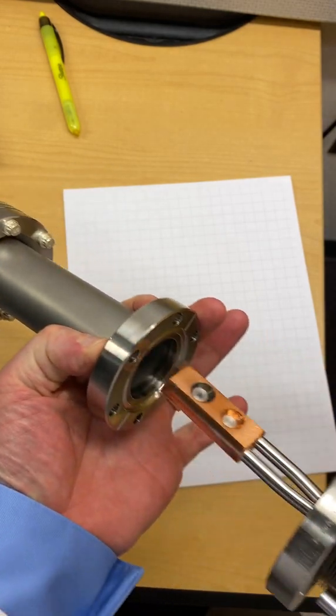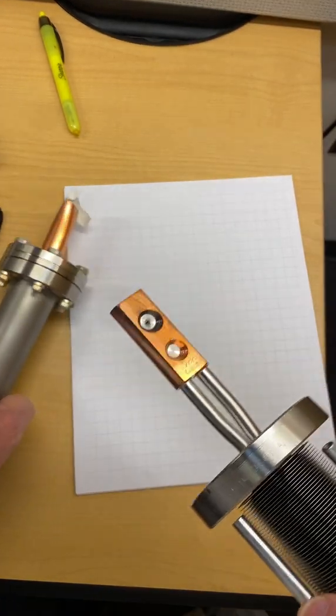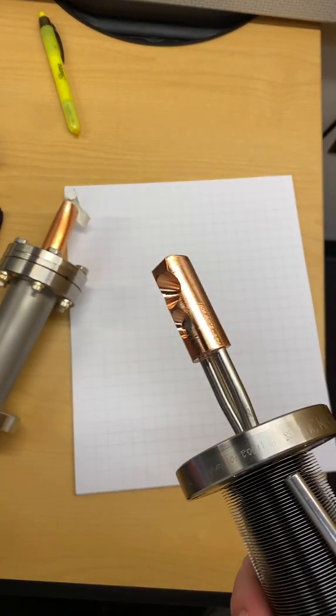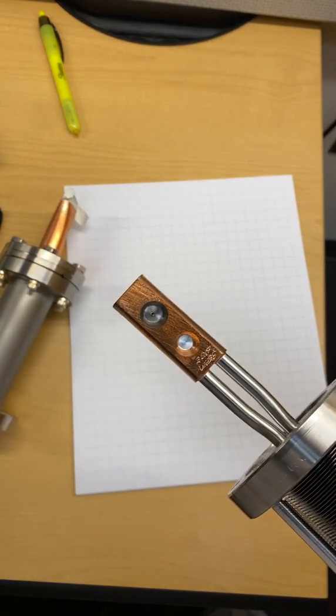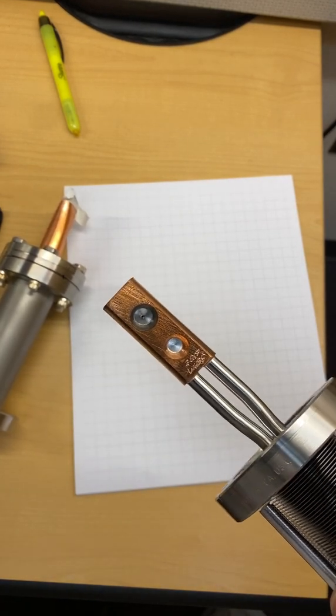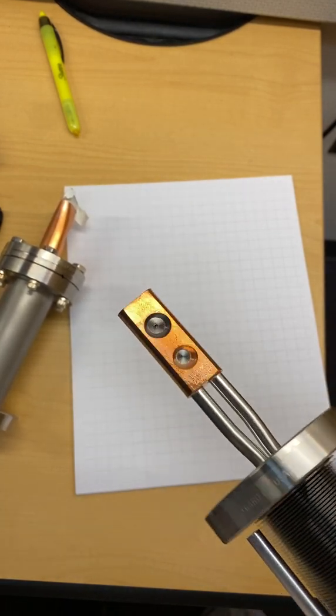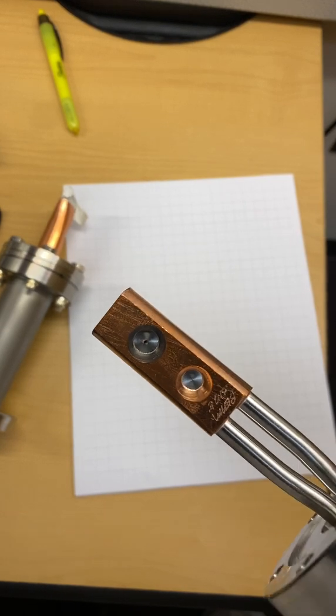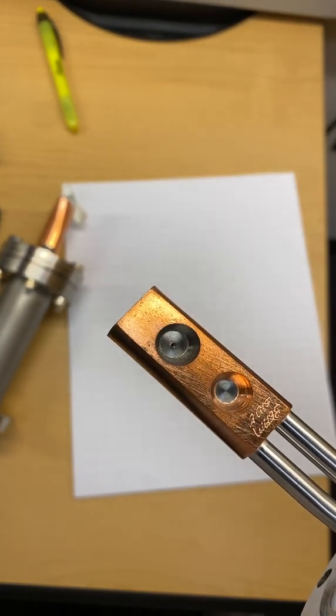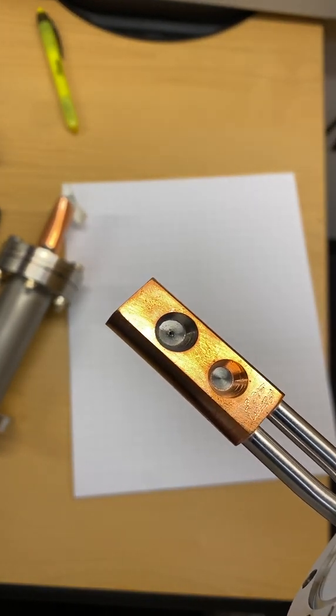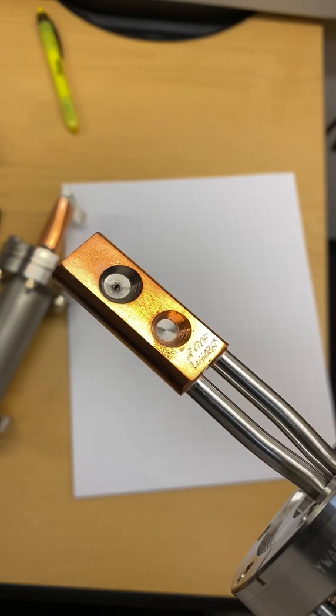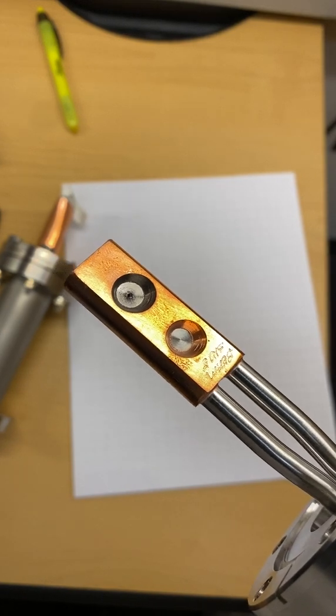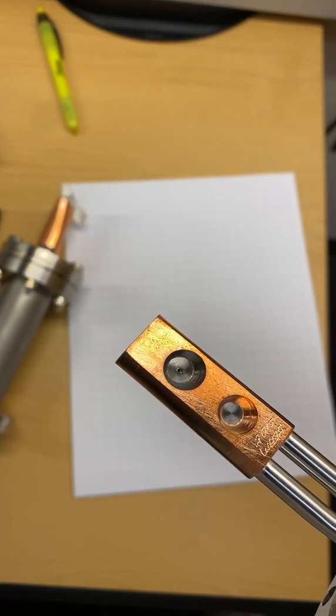This comes in two parts. If we pull it apart we can see that this is a megavoltage LINAC x-ray target right here and you can see this one's been damaged. See the little pit in there? That's why this one was replaced. That's what a clean target looks like and this is a damaged one.